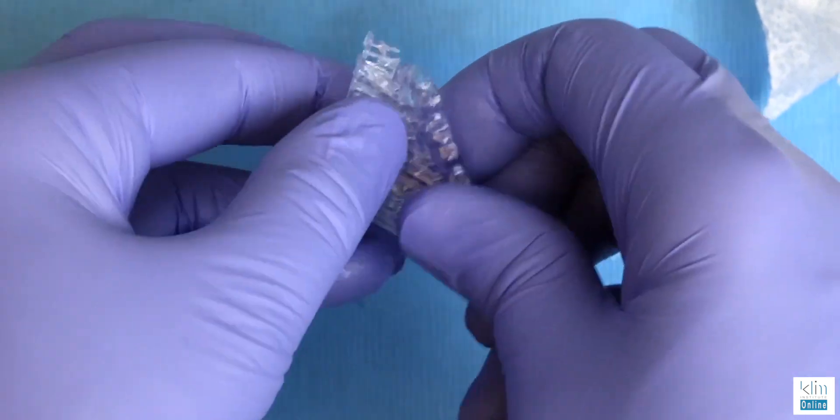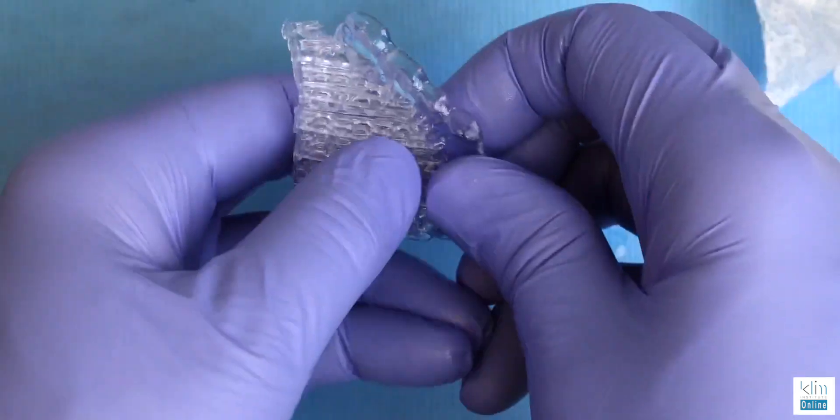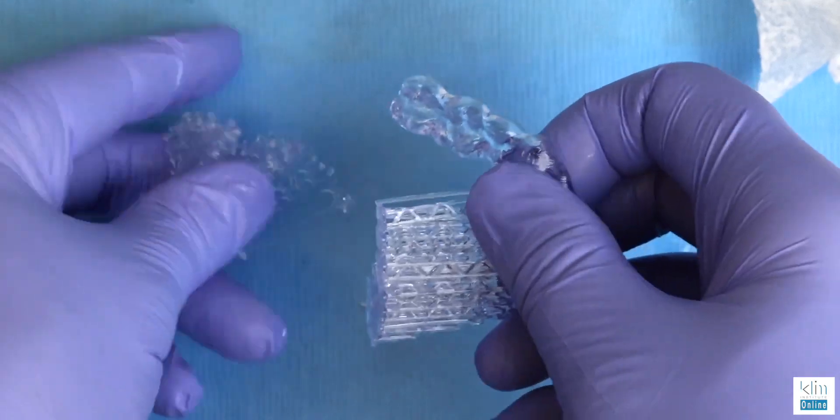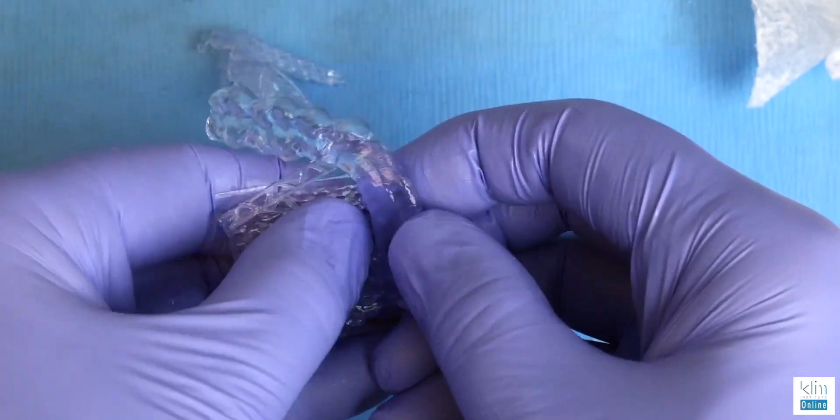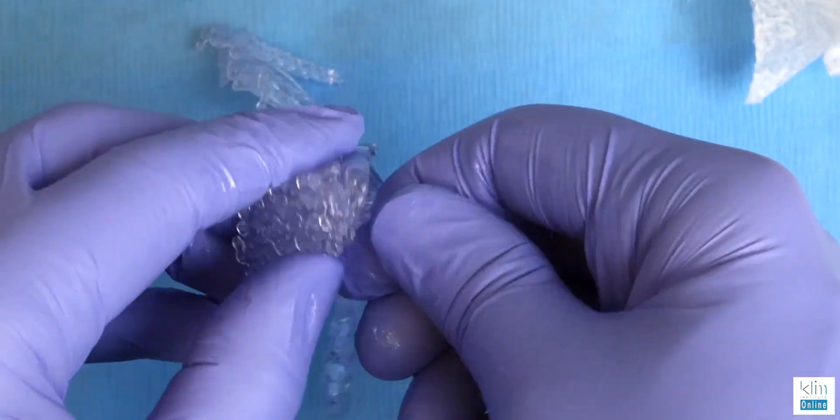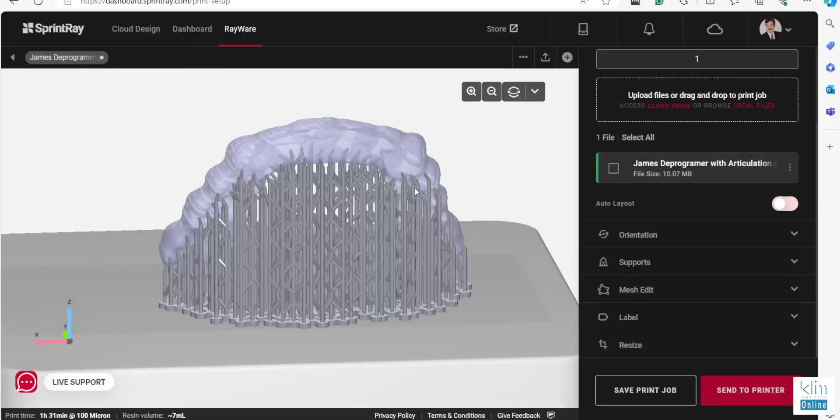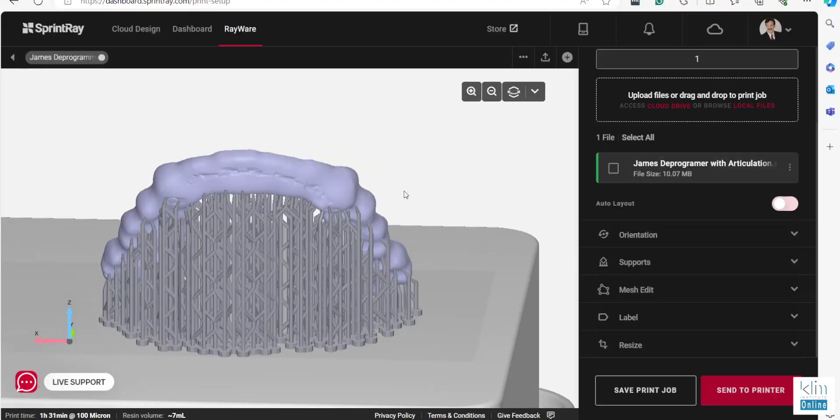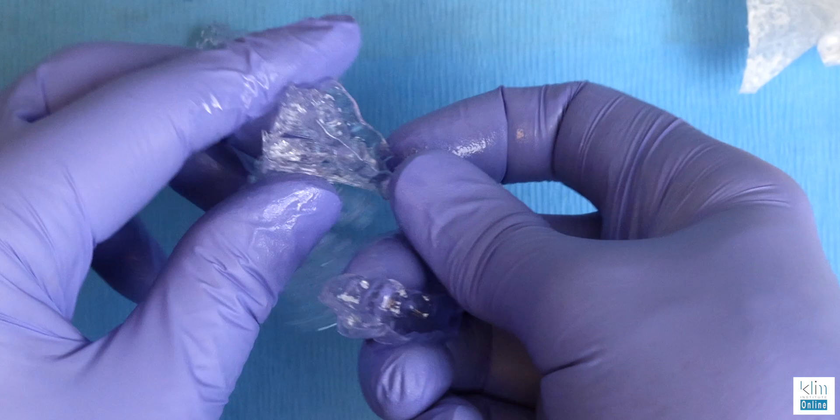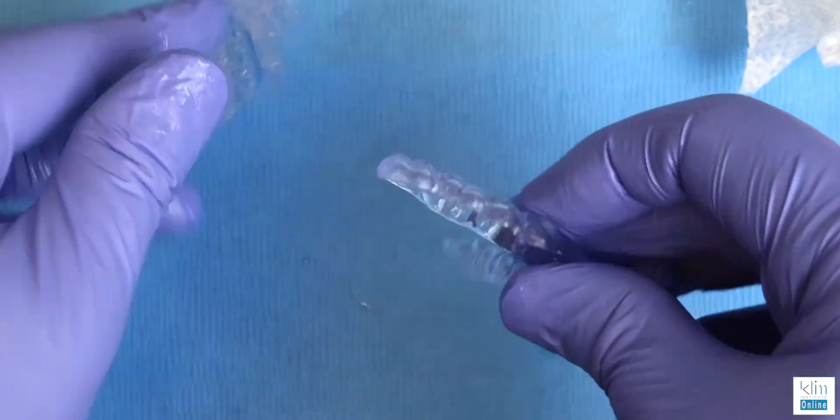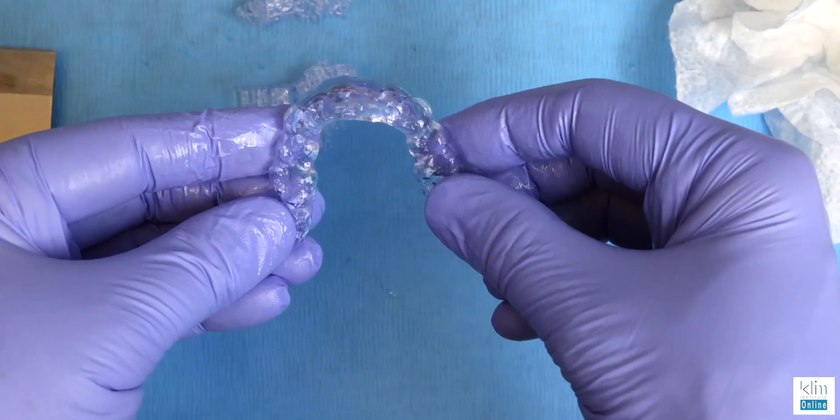At the time of this video, I prefer the RayWare Cloud software. It has better support options, and the supports are easier to get off. We did maximize them, but they're not on the deprogramming platform anteriorly, which makes these restorations drop in, or I don't have to touch the occlusion.